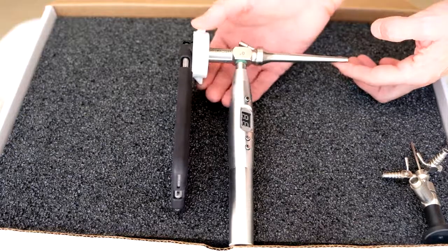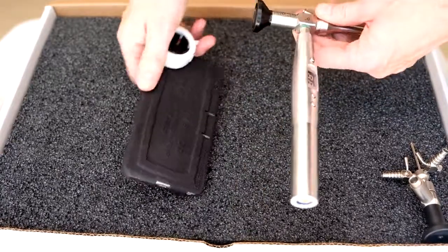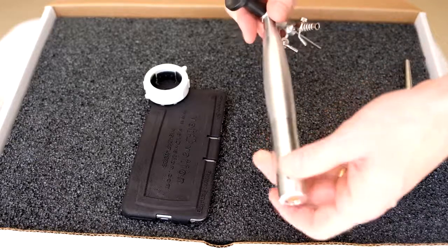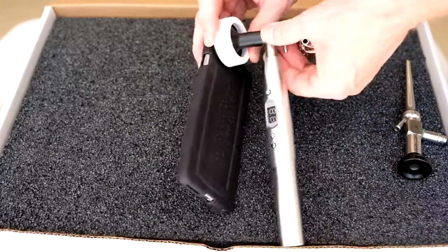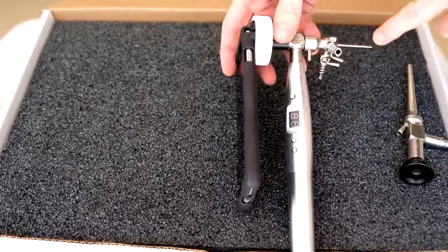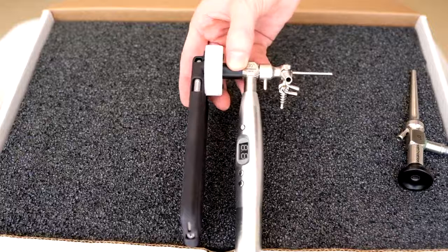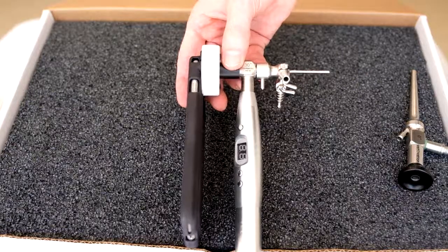The system has been designed to work with a variety of different scopes. If your practice already has other scopes, you can simply take the adapter and light source off, and these adapters are all standard among the major manufacturers with this kind of coupler, so you can put other scopes in and use them with this. For example, this is a VetOvation 2.4 millimeter scope that's 30 degrees — it has an outside working channel that you can hook up saline to and go up into a cat's nose and do rhinoscopy while delivering a little bit of saline to keep that field of view clean and clear.